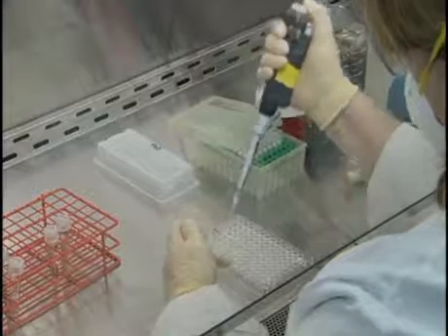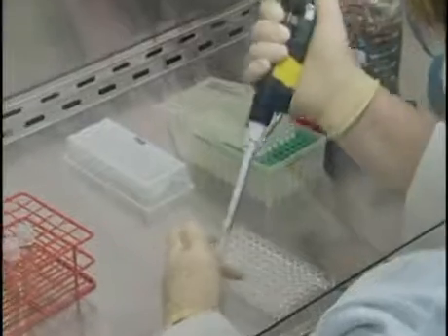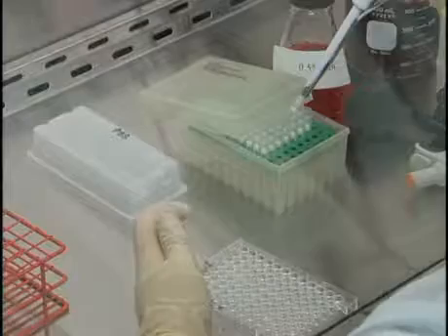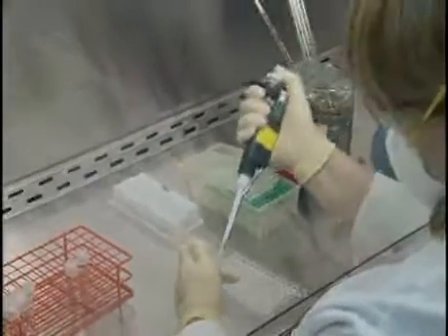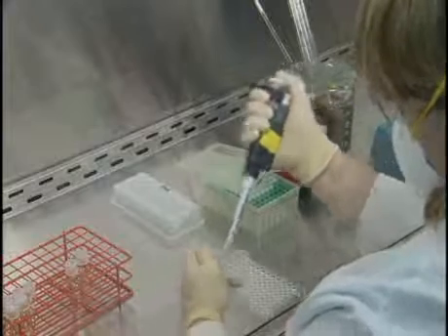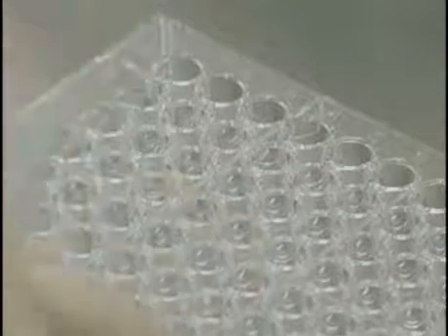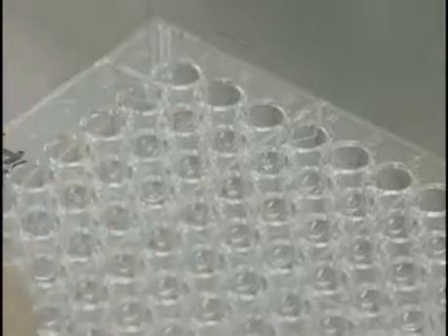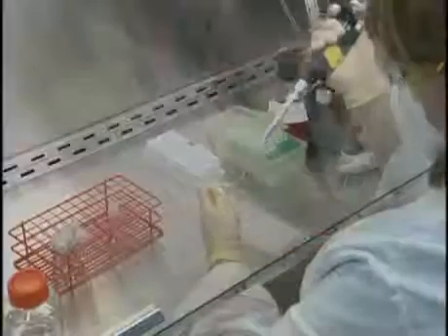Begin by labeling U-bottom microtiter plates in rows of 8 wells for each unknown to be tested. Label an additional row to be used for a positive control. Add 25 microliters of the unknown virus sample, diluted to contain 16 hemagglutinating units per 50 microliters, which is equivalent to 8 hemagglutinating units per 25 microliters, to each of the 8 wells in the corresponding row. Also, add 25 microliters of diluted Newcastle disease virus to each well in the positive control row.